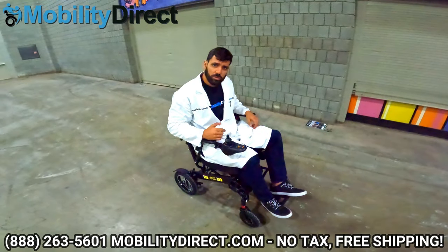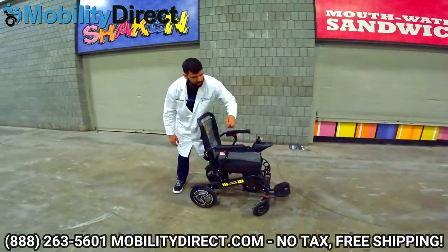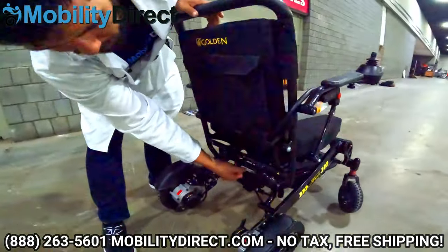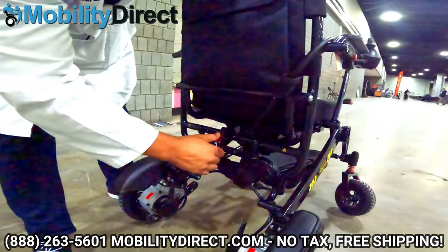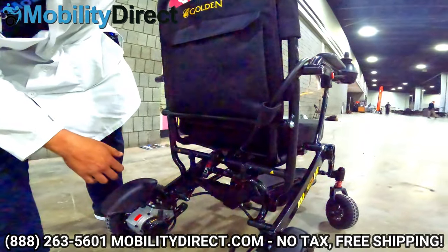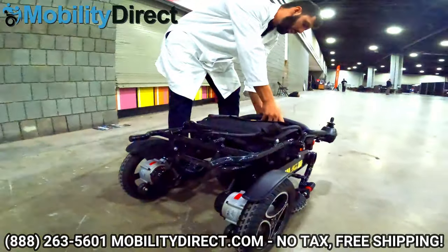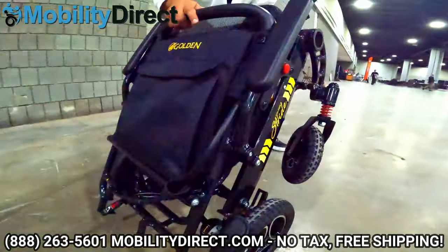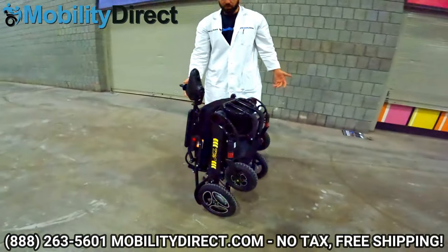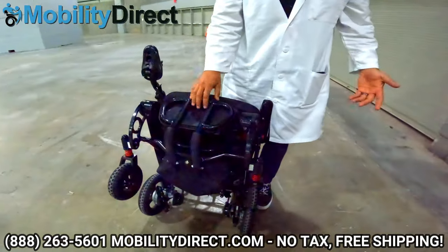You can feel the suspension pretty nicely while riding. To fold this power wheelchair, it's quite simple: turn the battery off, then lift the lever in the back completely up. You'll notice it starts to fold — put one hand on the backrest and fold forward, and it will start to collapse. Once it's folded all the way, you can stand it up and wheel it around. It's very easy to work with at about 55 pounds.